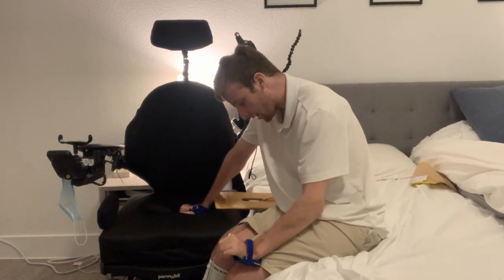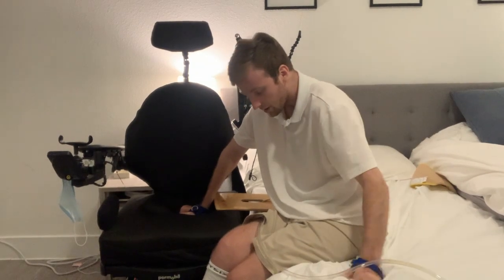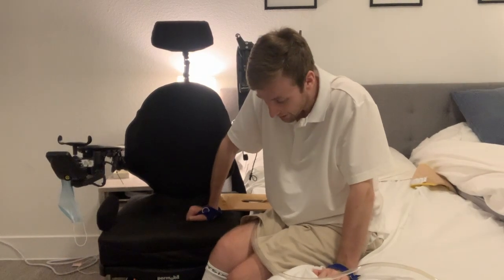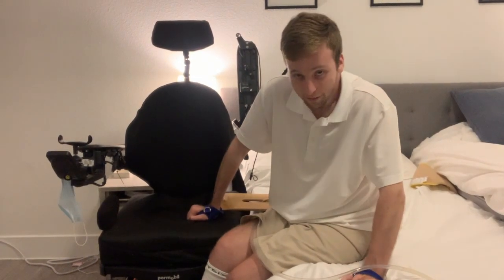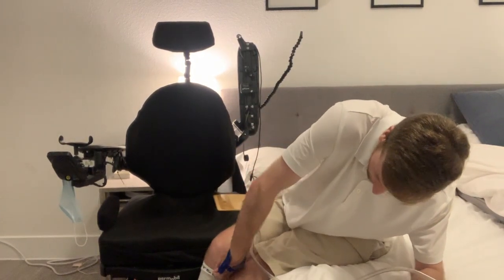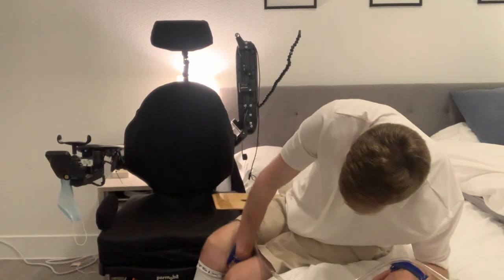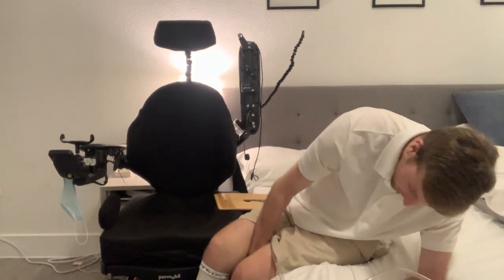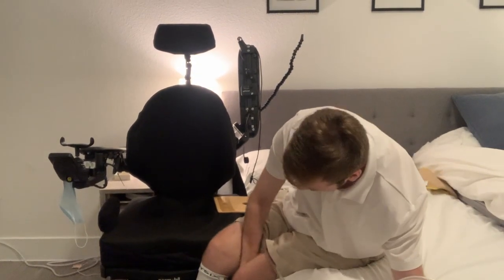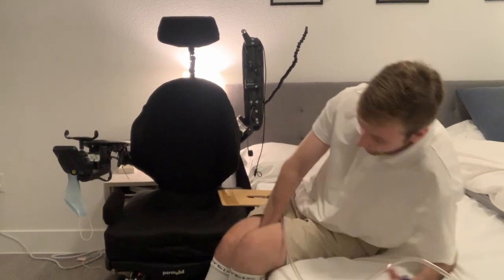Here's the fun part. My legs have retained a decent amount of muscle on them, so they are super heavy, which makes it really tough to lift up. It looks like my foot is actually stuck on the foot plate — there we go, got it.